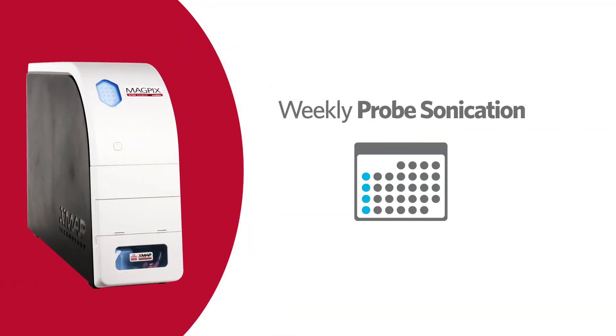Remember, cleaning the sample probe is part of the weekly maintenance schedule for the Luminex MAGPIX instrument.